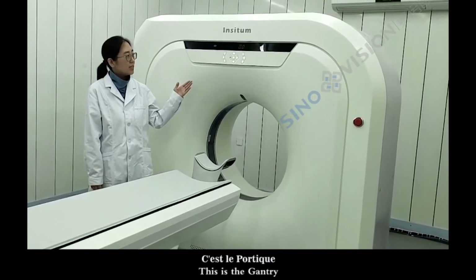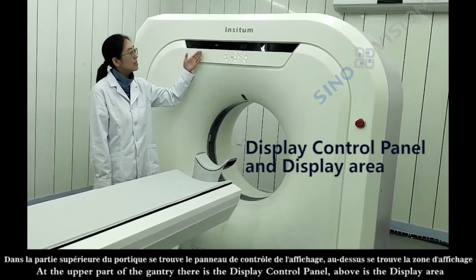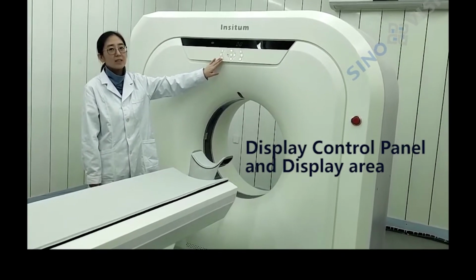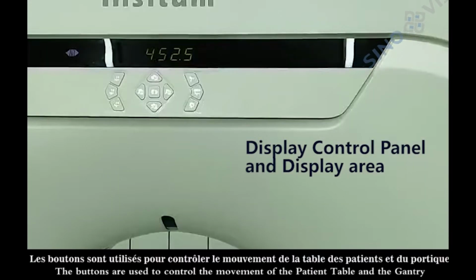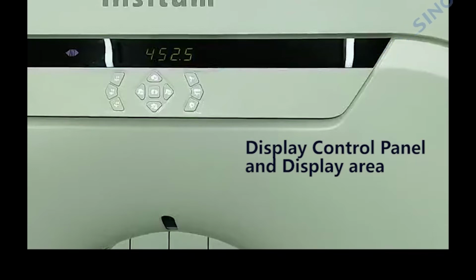This is the gantry. At the upper part of the gantry there is the display control panel. Above is the display area. Below are the control buttons. The buttons are used to control the movement of the patient table and the gantry. The functions of these buttons are as follows.